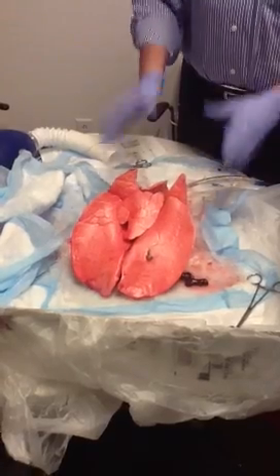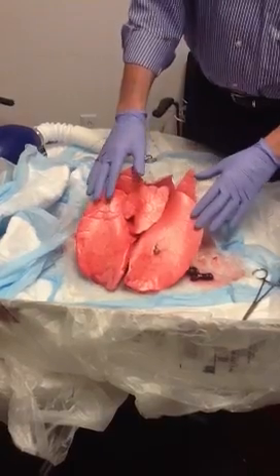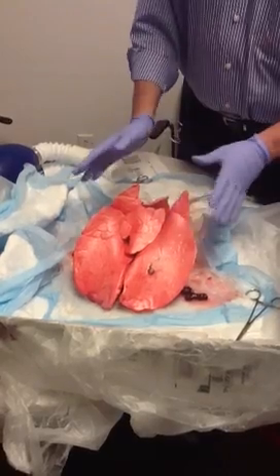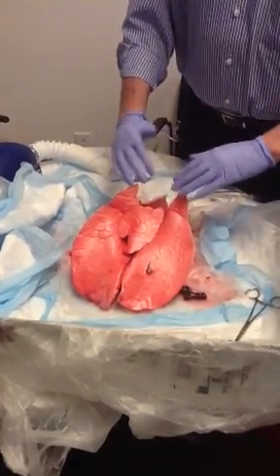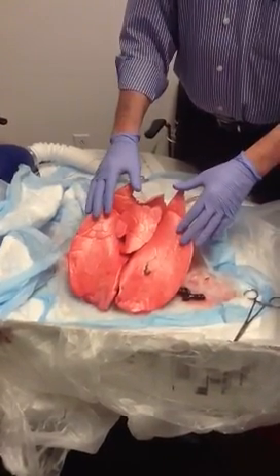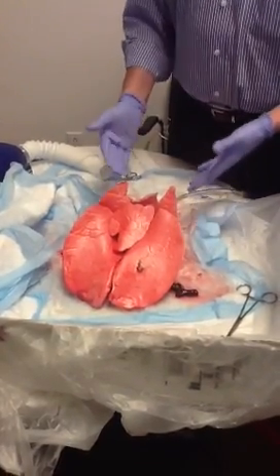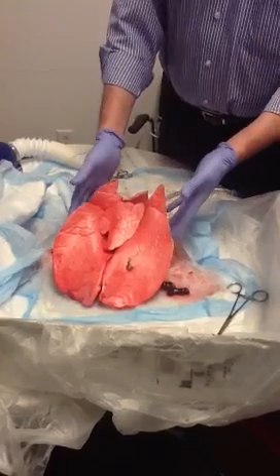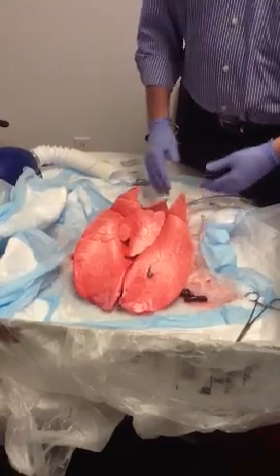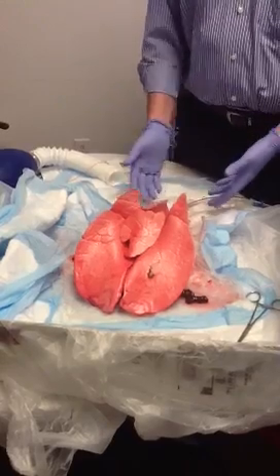Right now we're on a PEEP of 12 in pressure control ventilation with a driving pressure of 6, getting a great tidal volume. These lungs have been totally recruited. Pig lungs have a greater total surface area than human lungs, but the alveoli are smaller. This lung is from about a 70 kilogram pig, equivalent to a 140 pound person. We have good compliance — compliance times a pressure gradient of 6 gives us a good tidal volume. Flow in pressure control ventilation is rapidly decelerating, and it's pressure gradient over resistance, so we're getting good flow.